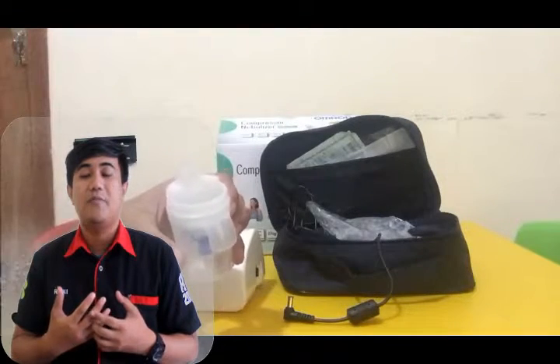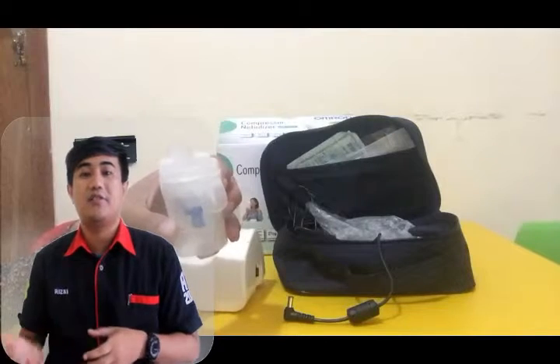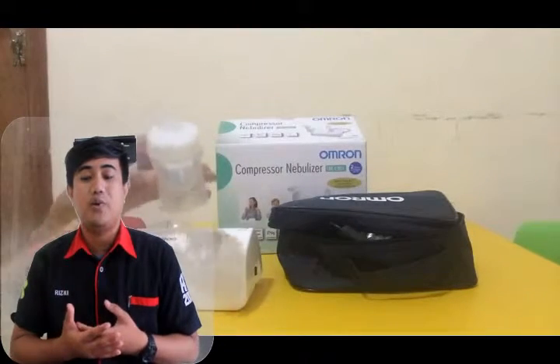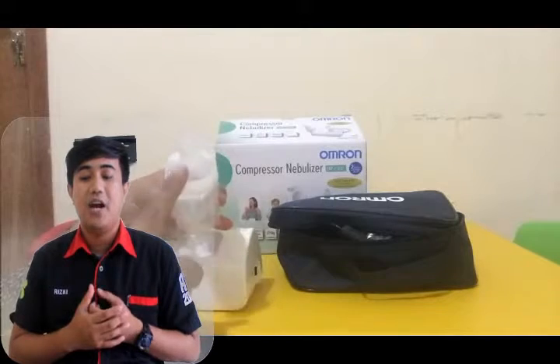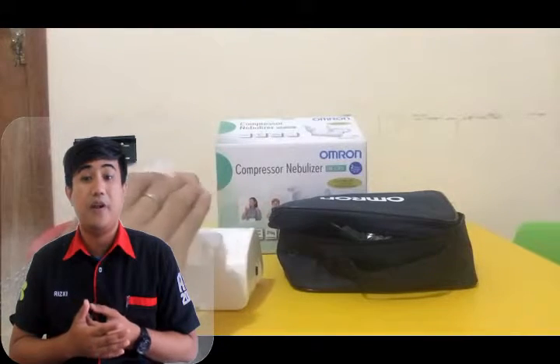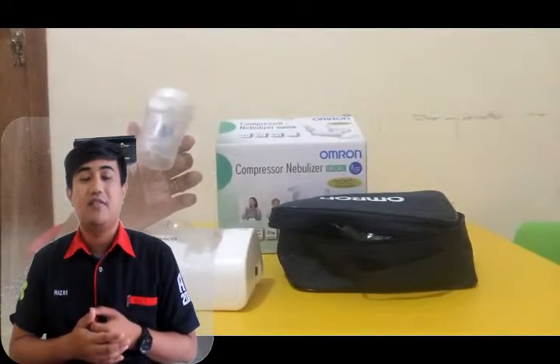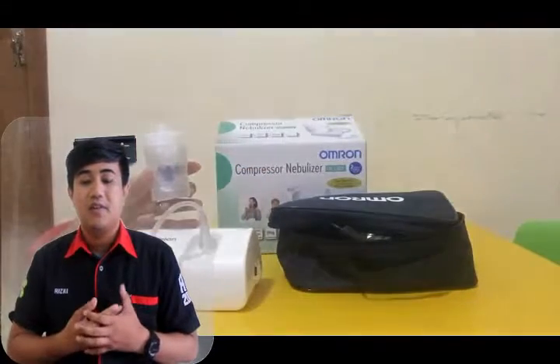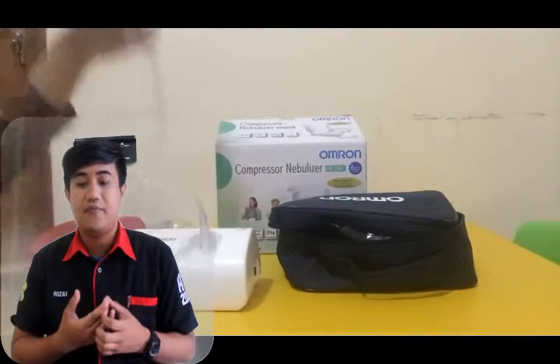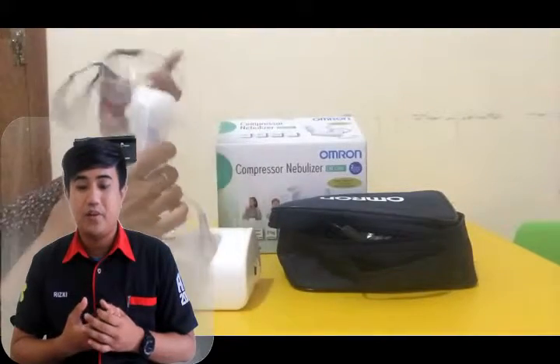There are two types of medical nebulizer: the nebulizer compressor and the ultrasonic nebulizer. The nebulizer compressor uses air compression, which gives air pressure from the pipe to the cup containing liquid medicine. The strength of the air pressure will break the liquid down into small vapor particles that can be inhaled easily into the respiratory tract. And two is the ultrasonic nebulizer. This tool produces aerosol through high frequency oscillation from a piezoelectric crystal, which breaks the solution and liquid into aerosol.